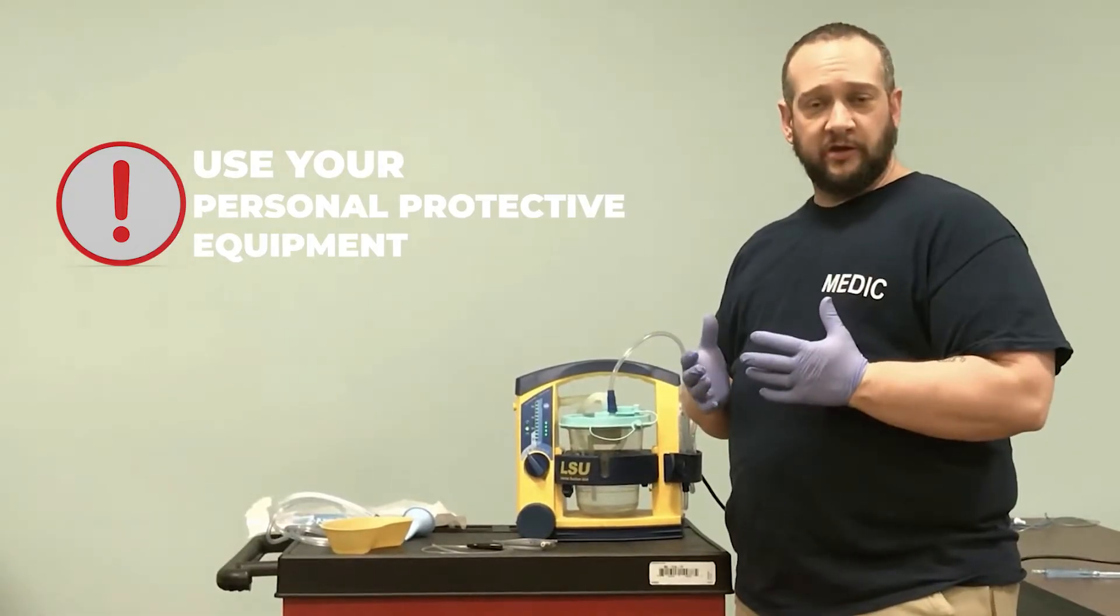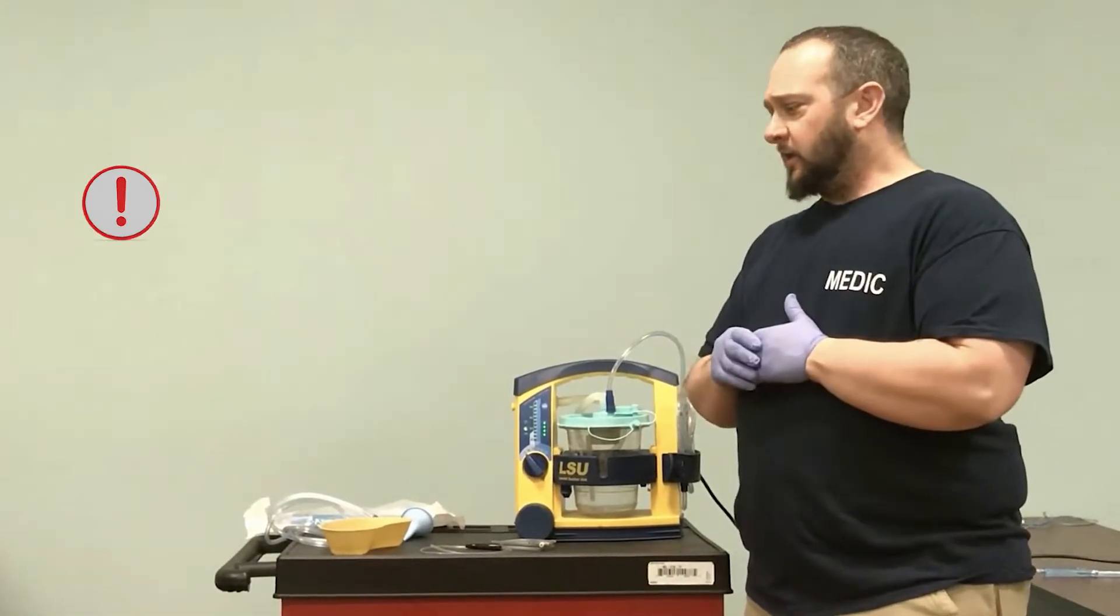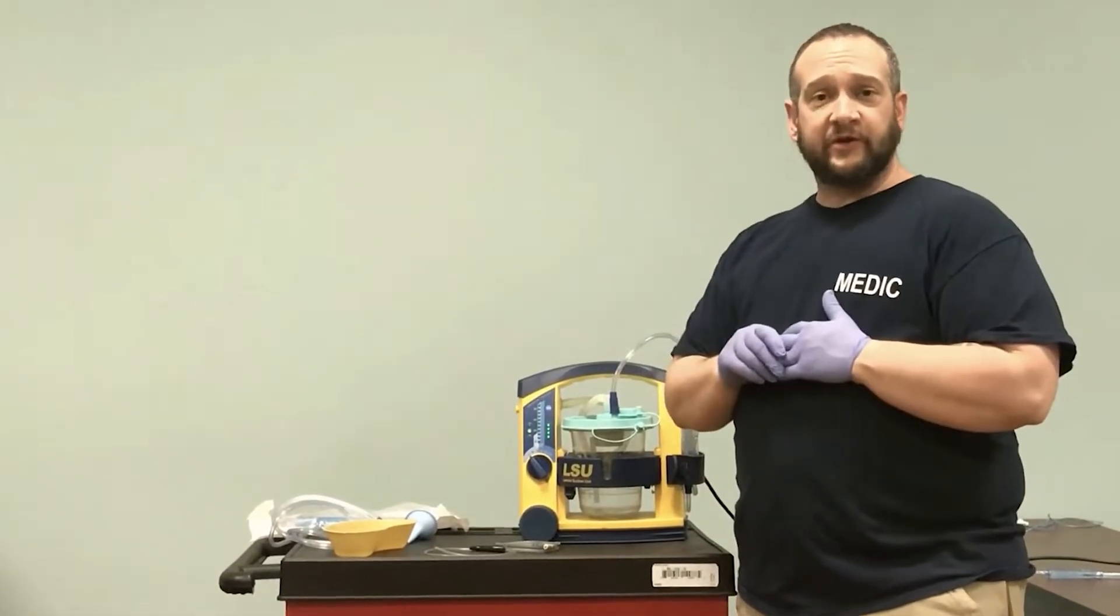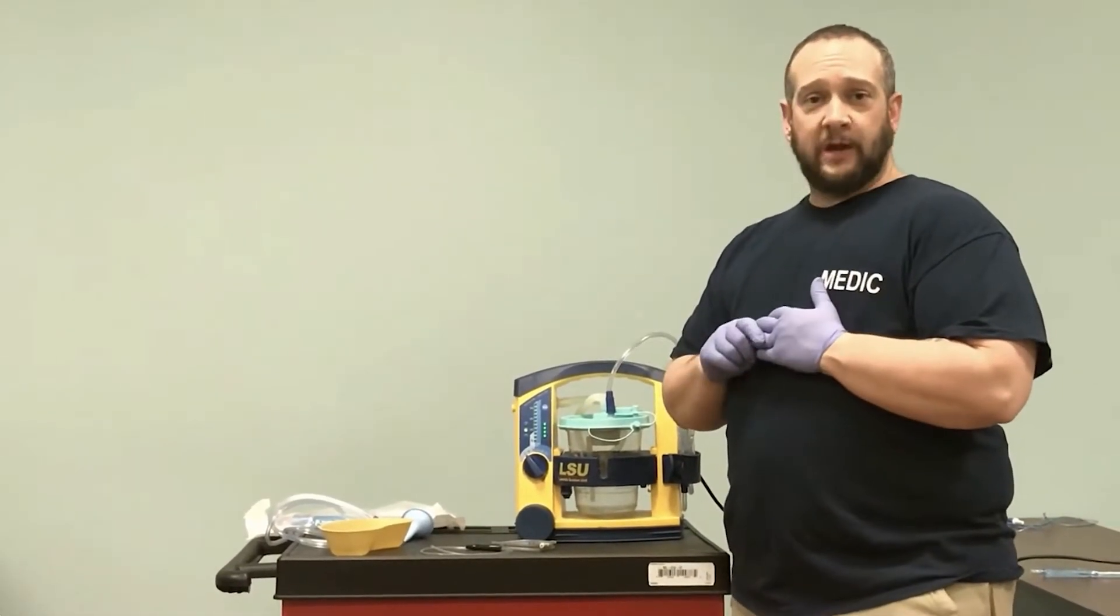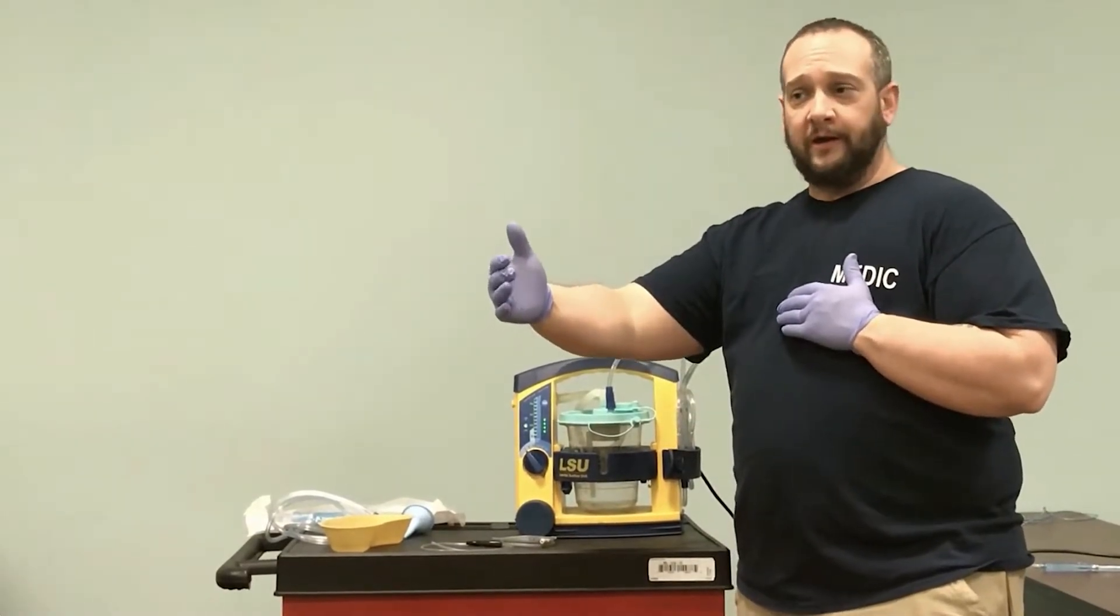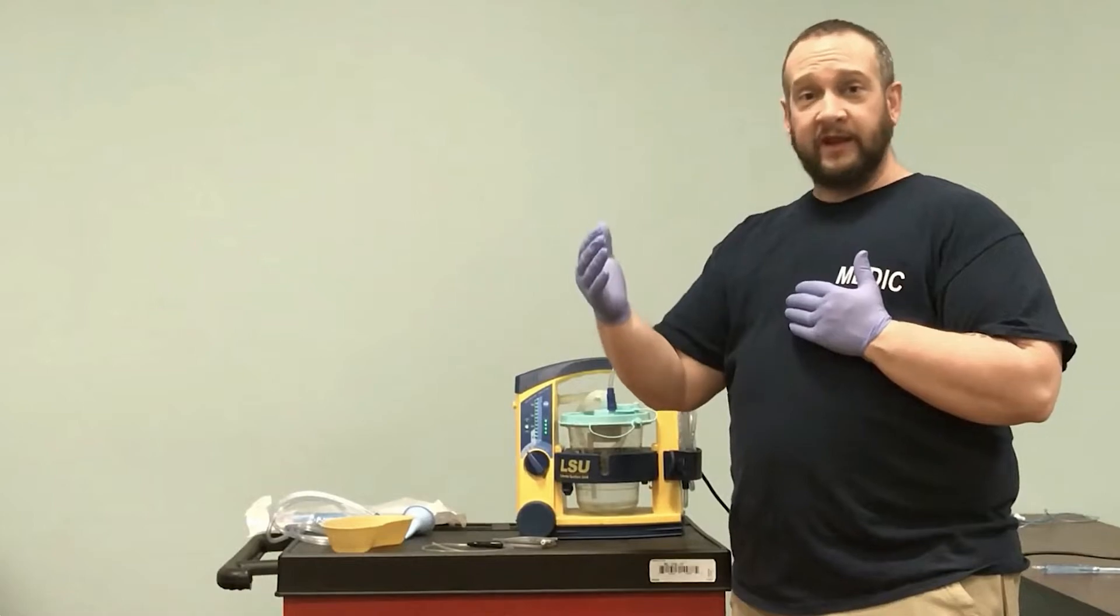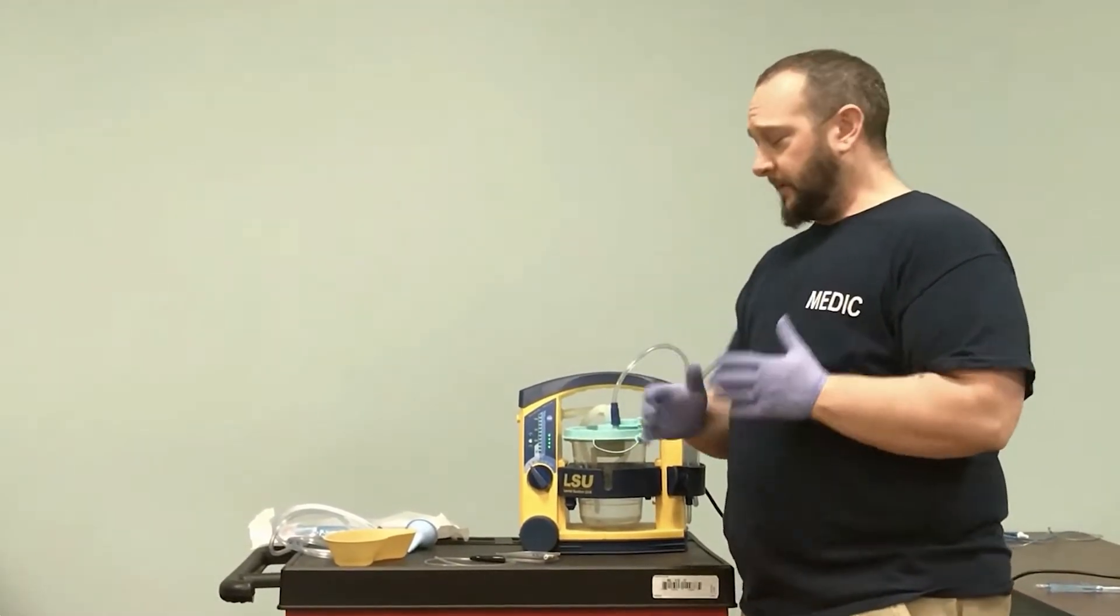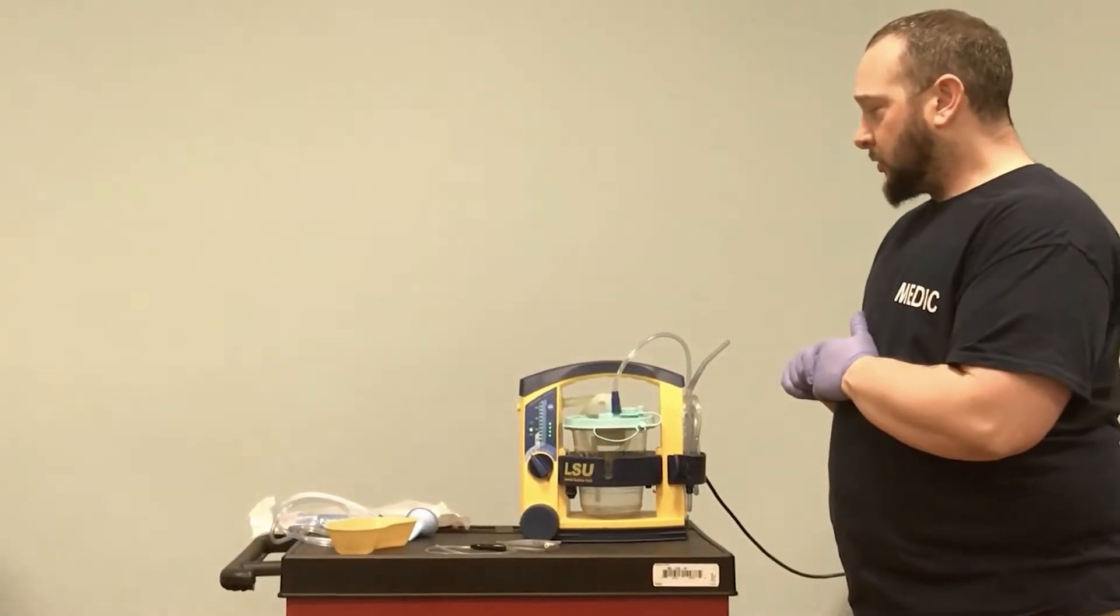Use your PPE to make sure you're protected. Eye protection and gloves are essential. Anytime you're suctioning, we run the risk of secretions starting to fly about. We've had times where the person at the foot of the cot gets hit with secretions. Always get your PPE on and take a look at the equipment.